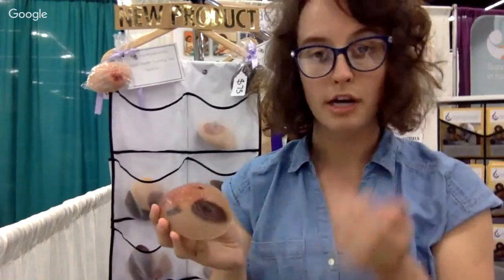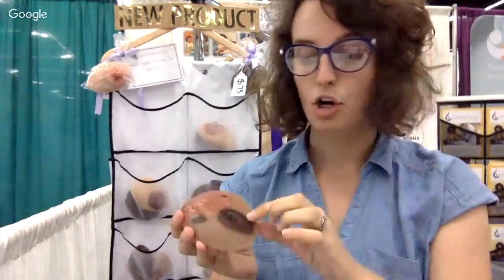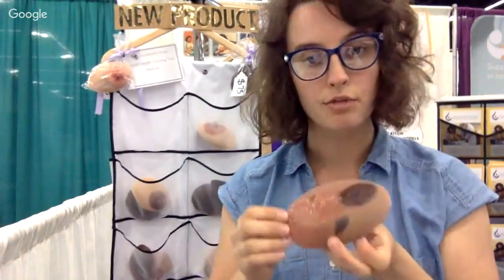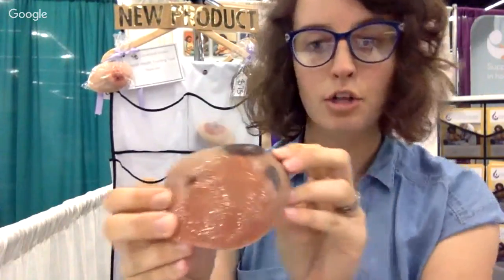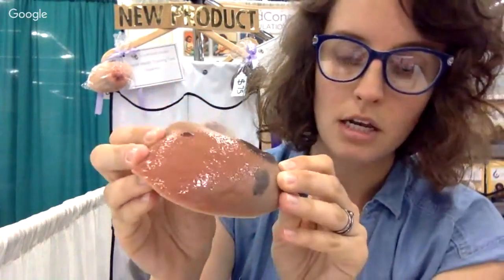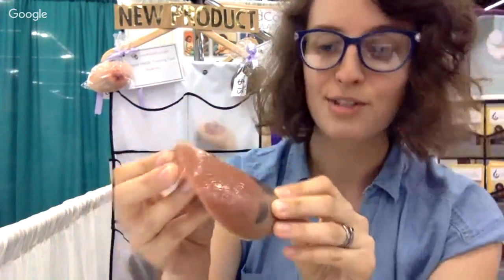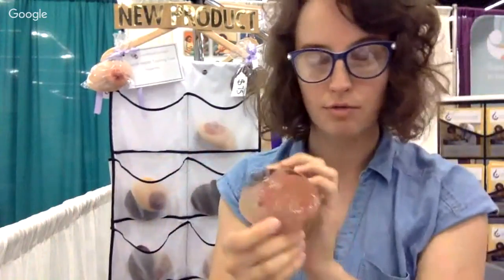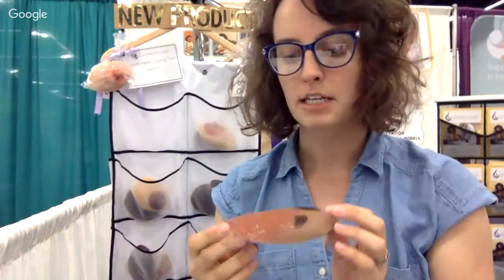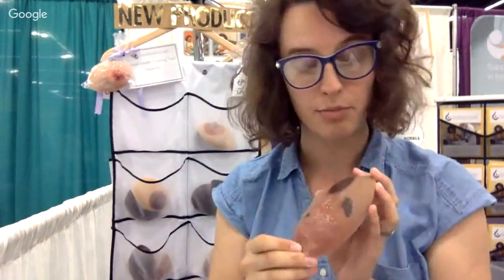Is there an underlying lobular carcinoma? Have you noticed that there's this red discoloration of breast tissue on the side? If you look closely at the texture, you can see that it kind of looks like orange peel skin. This is a condition known as peau d'orange, which is French for skin of the orange, and this is a telltale sign of some sort of inflammatory process going on.